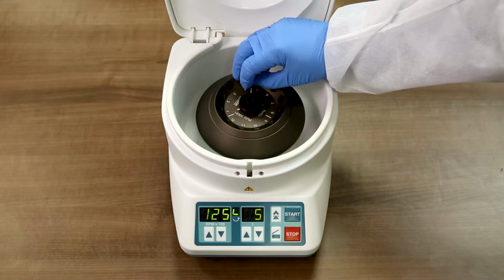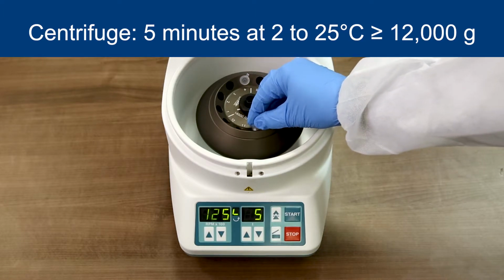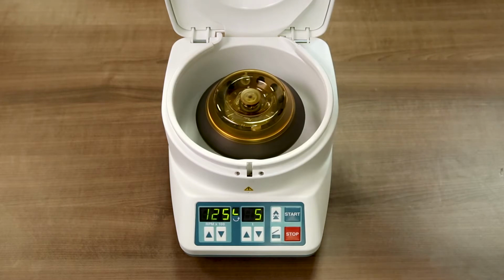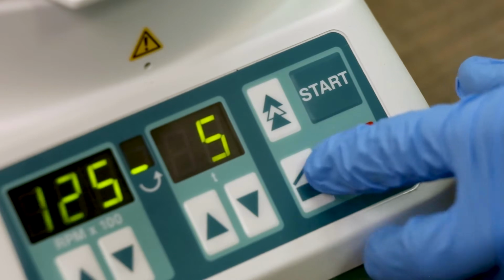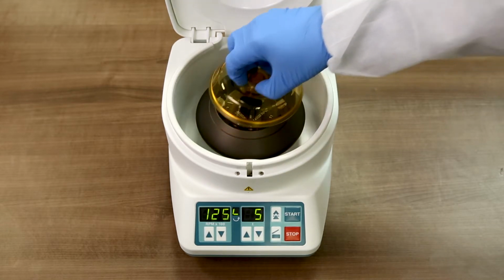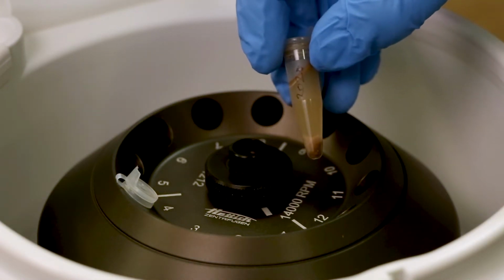Once the specimens have been prepared, place the tubes in the centrifuge. Centrifuge for 5 minutes at 2 to 25 degrees Celsius at a minimum of 12,000 G. Remove the specimens from the centrifuge and avoid mixing. You will notice a separation of the specimen. The top layer of supernatant will be used for testing.